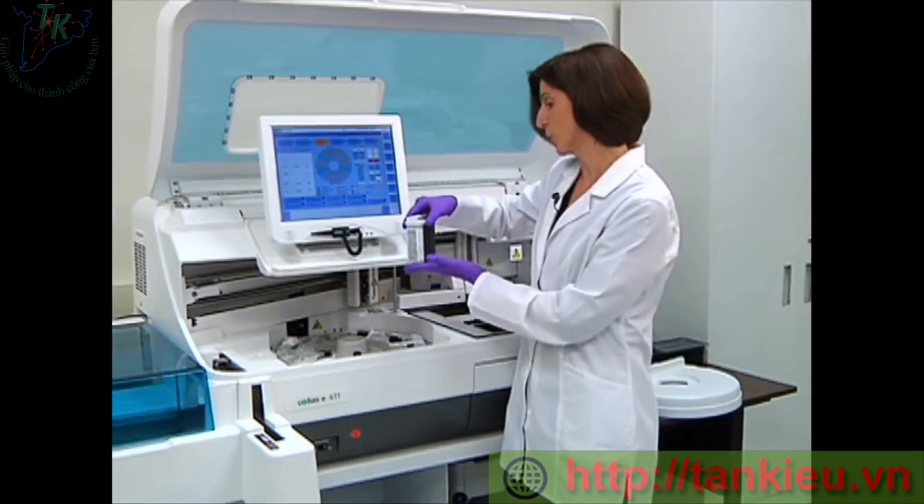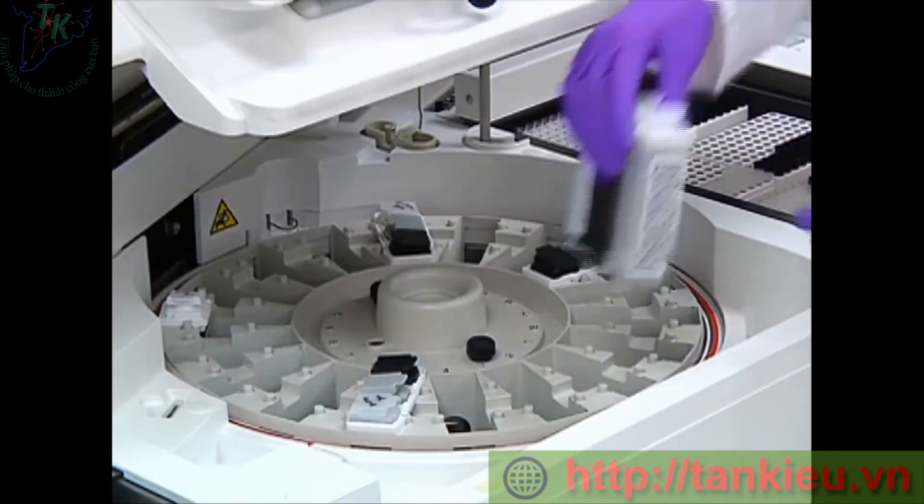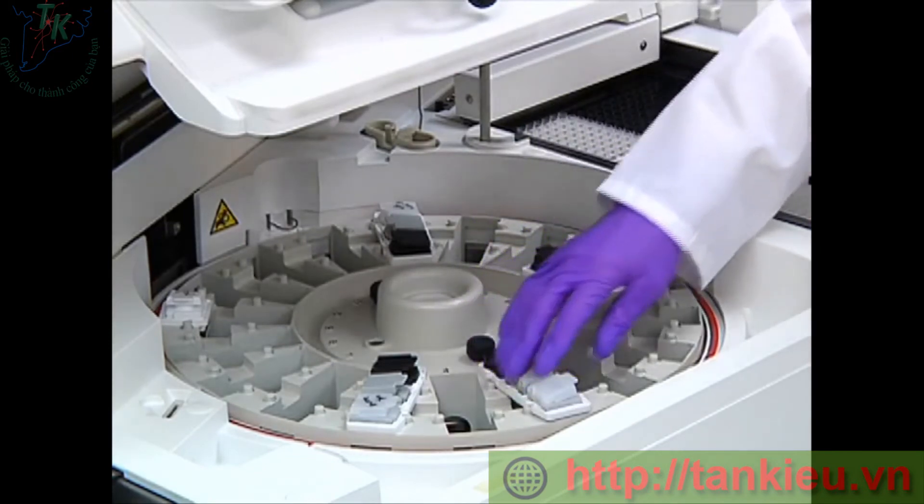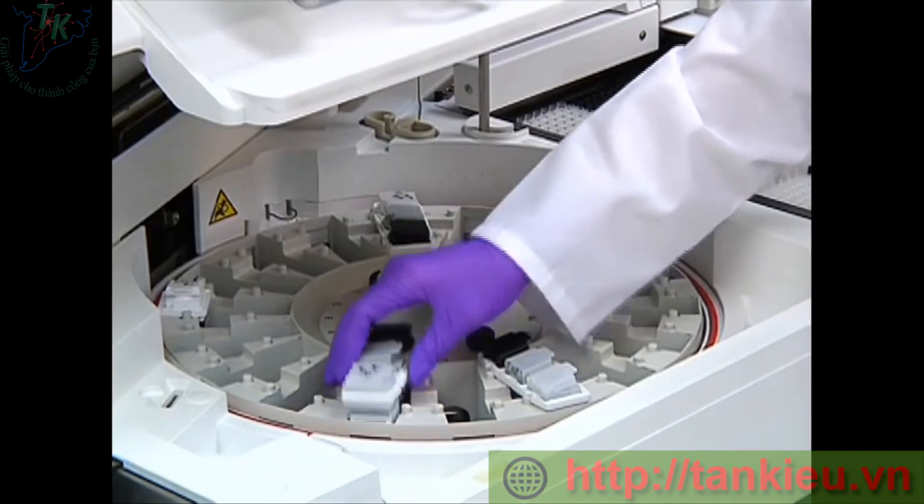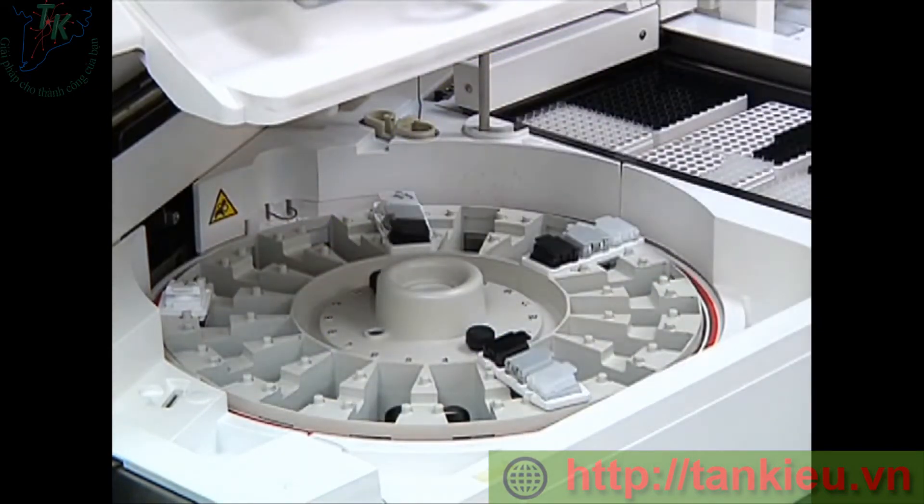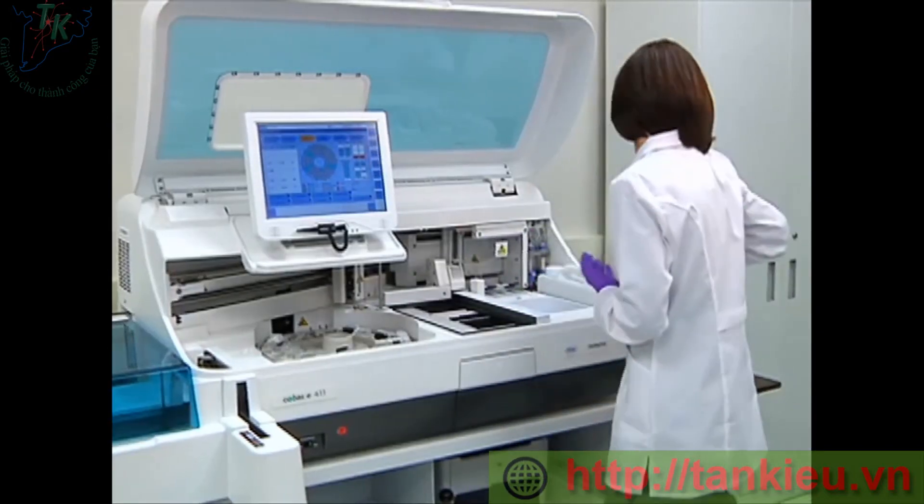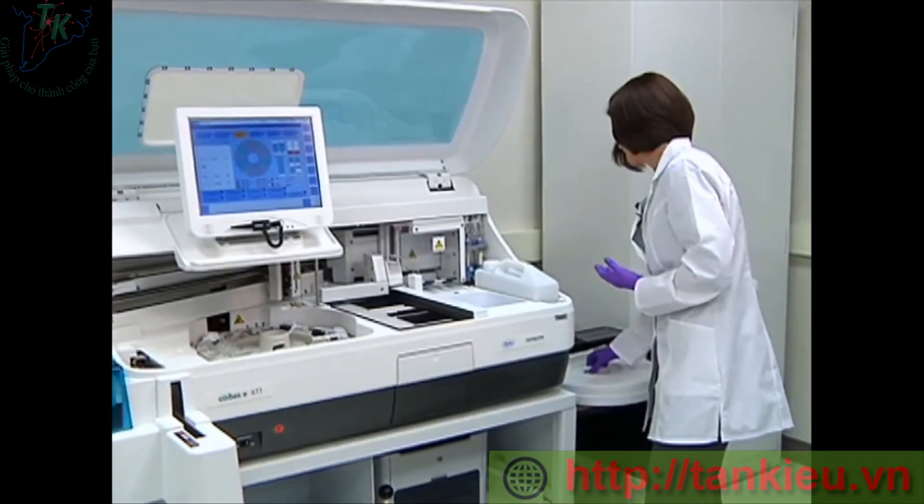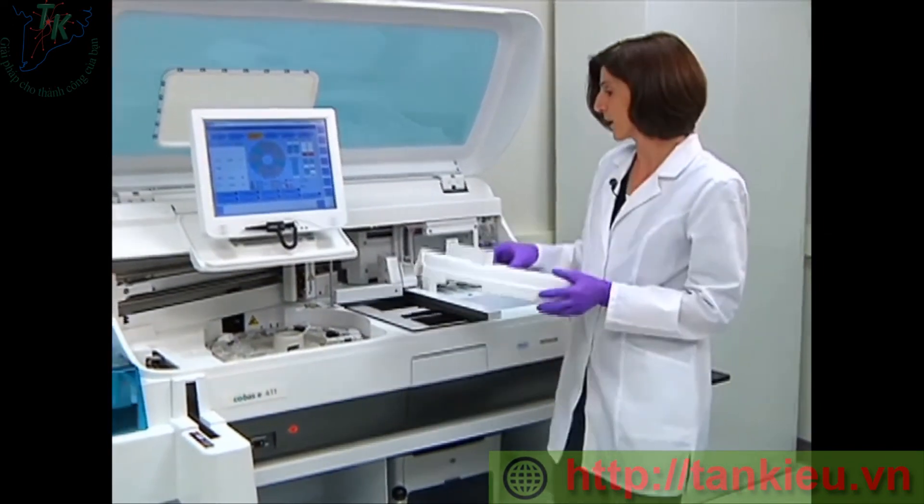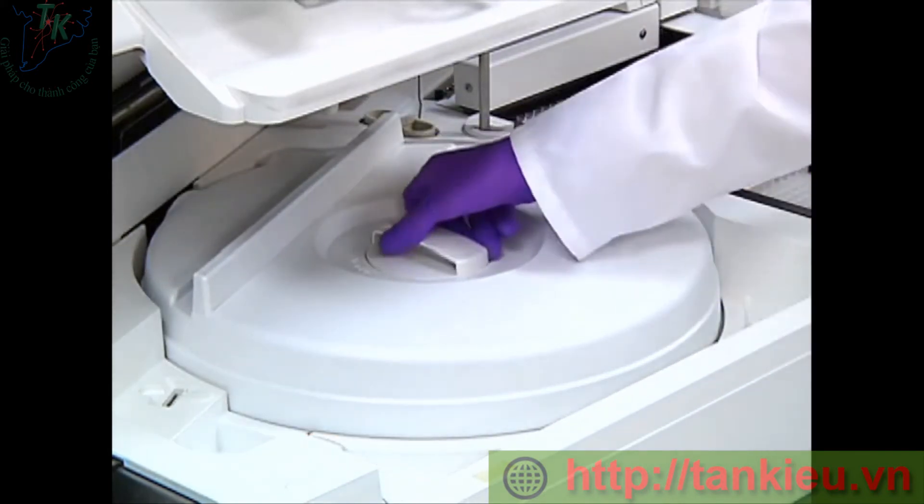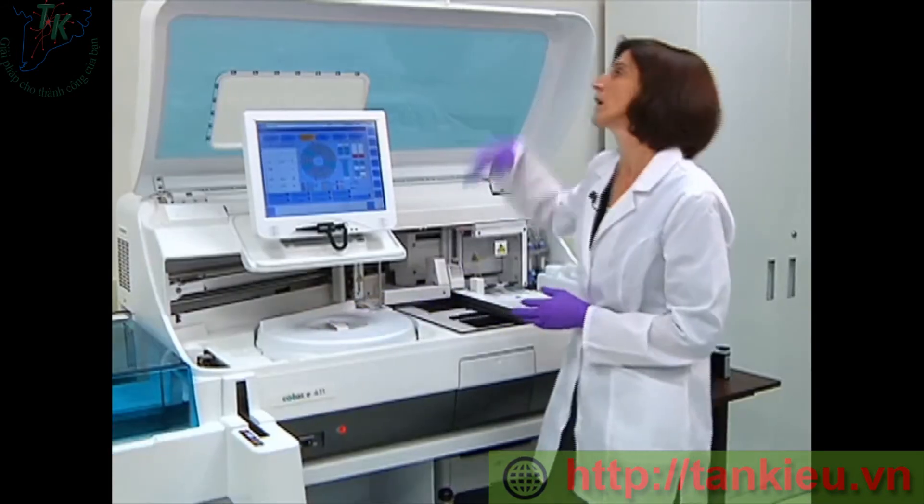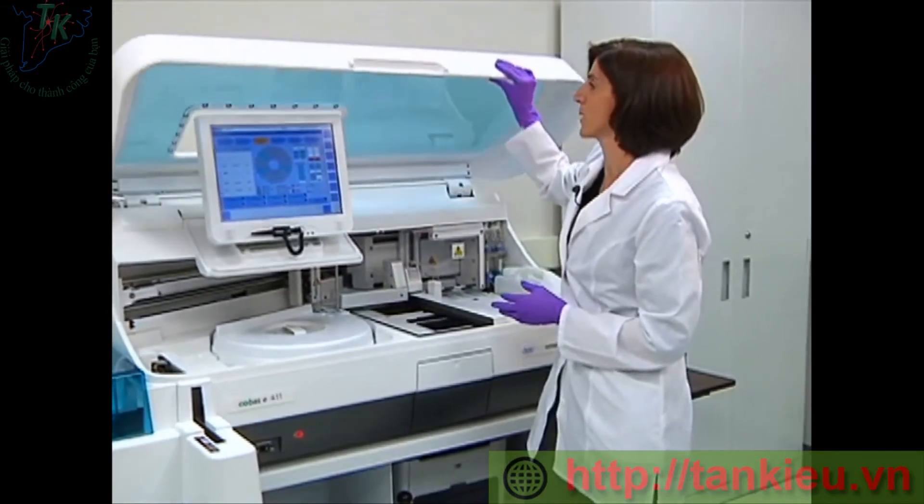Loading the reagent, we want to make sure that the white capped bottle is loaded to the outside of the compartment. Then I would remove any empty or expired packs by simply lifting them out of the compartment. Once all my packs are loaded and expired and empty packs are unloaded, I will return the reagent cover and then lock into place. Then I will close the top cover.